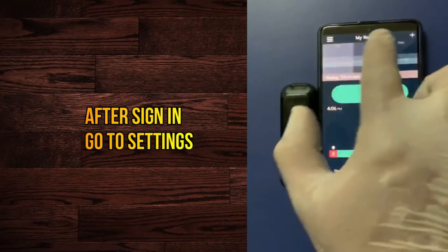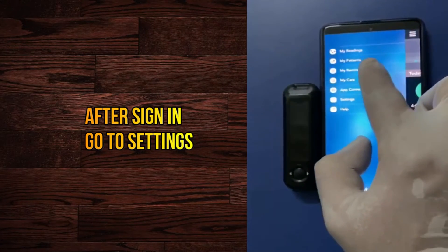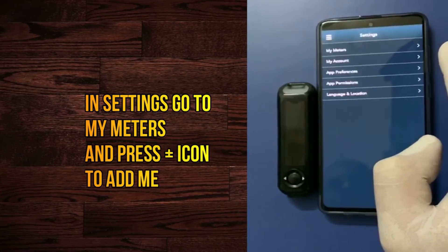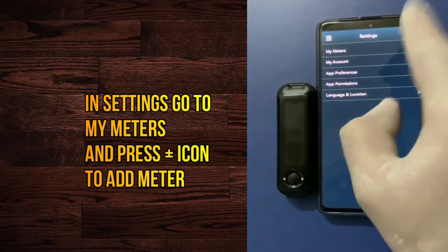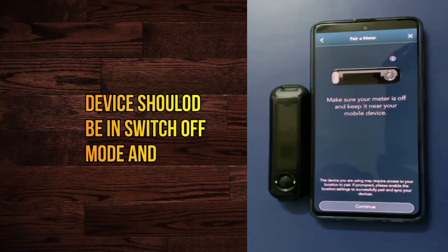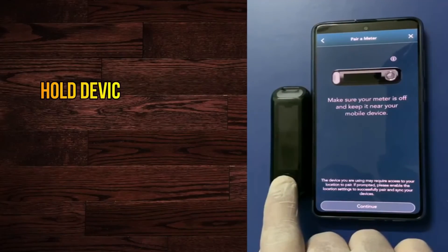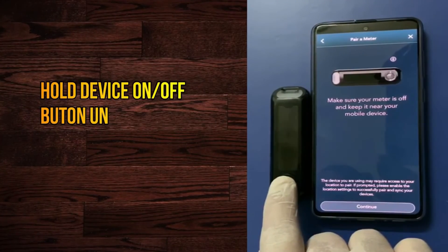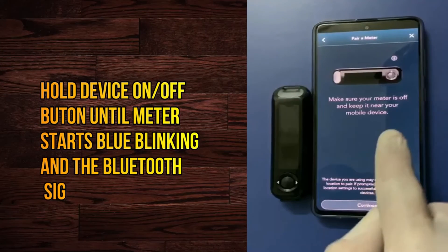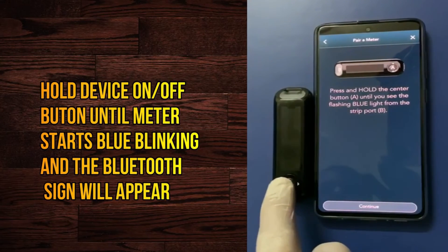Now go to the settings and go to My Meters, and press the plus icon. You can see here the meter is listed under devices. Turn on the glucometer now and hold until the Bluetooth sign appears on the glucometer.